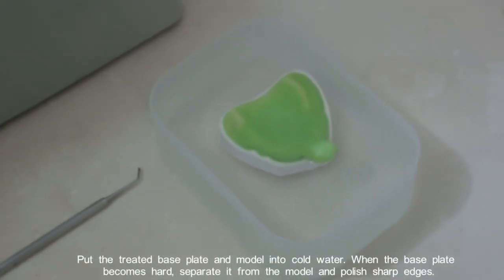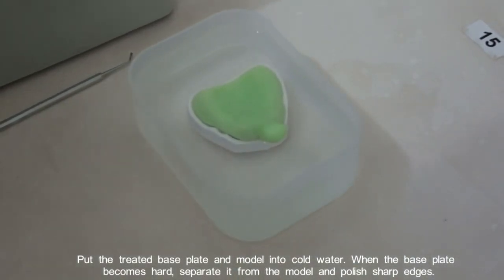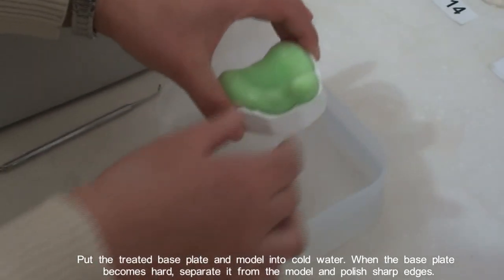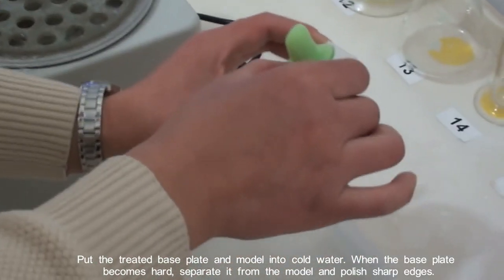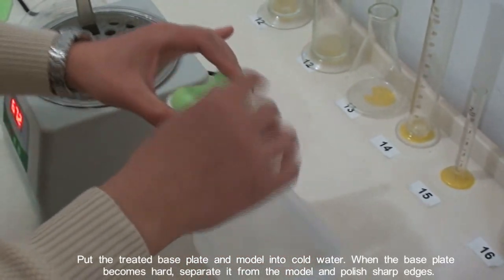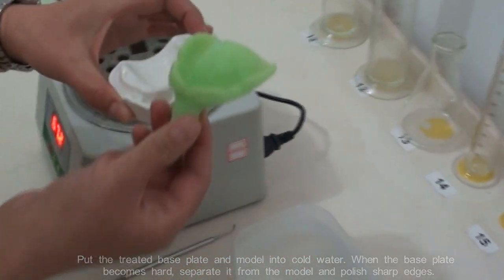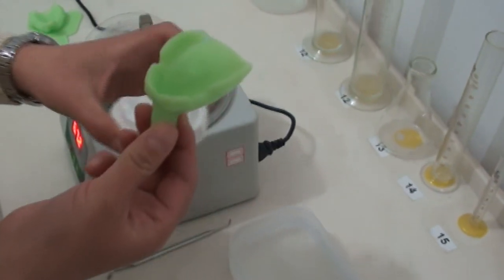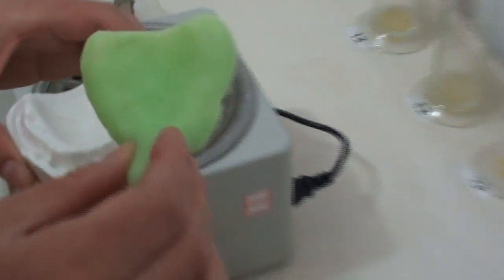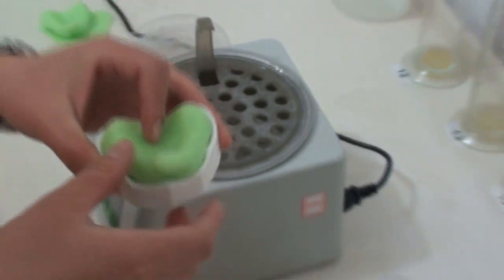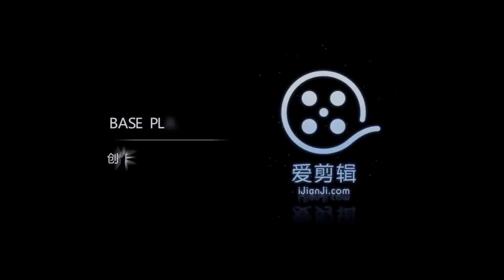Put the treated base plate and model into cold water. When the base plate becomes hard, separate it from the model and polish sharp edges. Thank you.